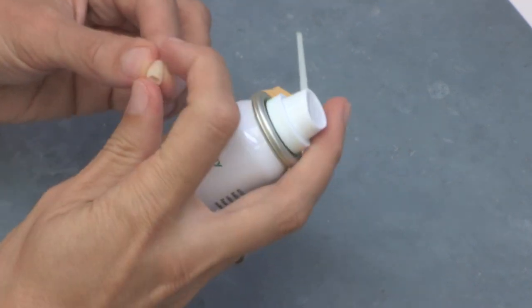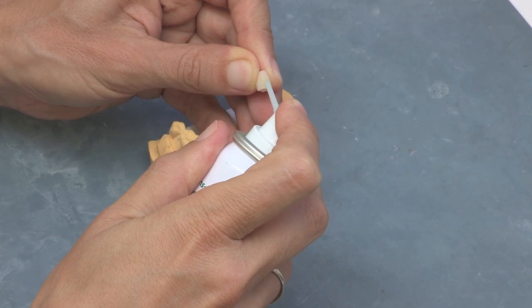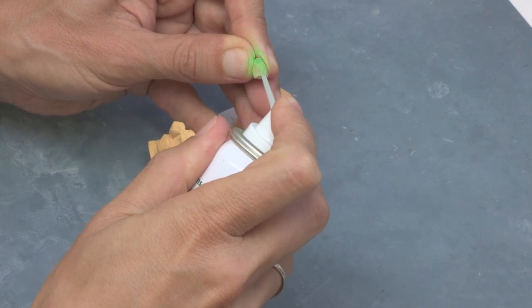Apply at a distance of 3 to 5 centimeters onto the occlusal surface or inside the bridge or crown. When testing occlusion or trial seating the bridge or crown, all contact points will be immediately visible.